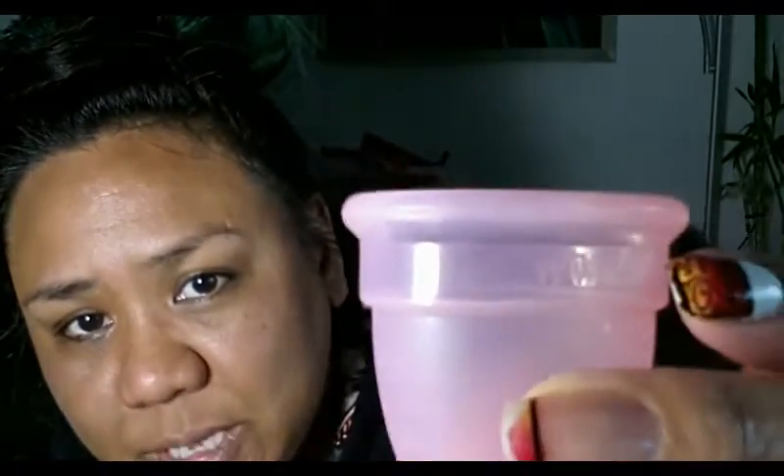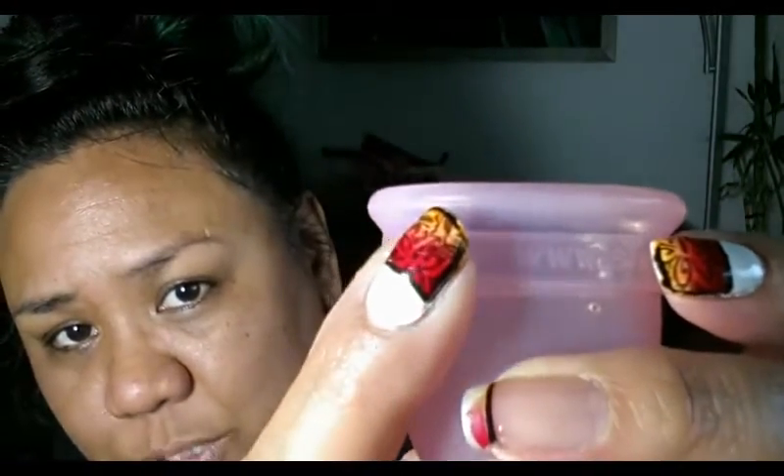On the top rim here, you can see that there are signs that there was a seam. You can just barely see it, but they did brush those away pretty nicely. I can't feel any kind of seam with my fingertips, and there are no other seams going down the cup that I need to mention.